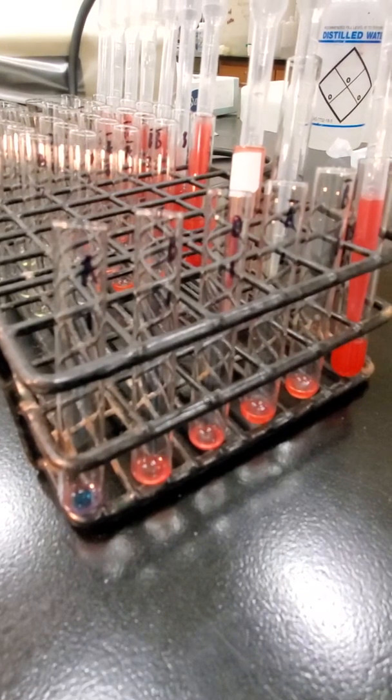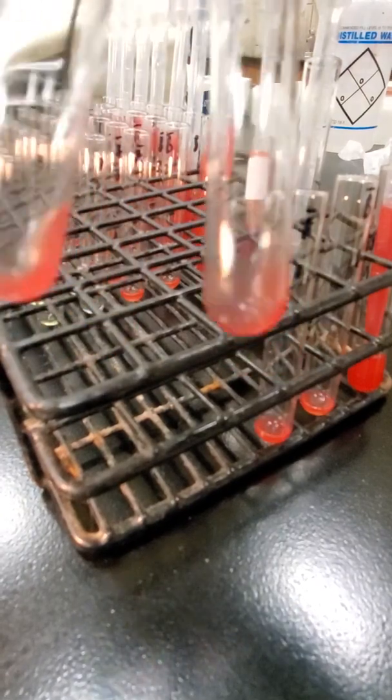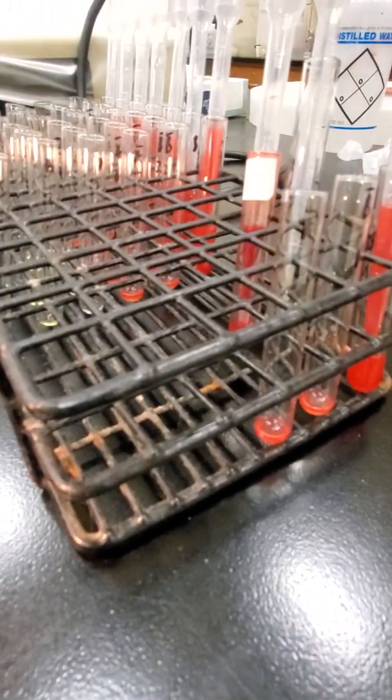So now that I have all my reagents added to my tubes, I'm going to spin these in my centrifuge. Whenever we spin things for the purposes of reading, we're going to spin those for 15 seconds, unlike the washes, which are a minute, or at least a minute. My reading spins are 15 seconds. So I'm going to go ahead and do that. And I'm going to mix them a little bit just so everything's mixed well.